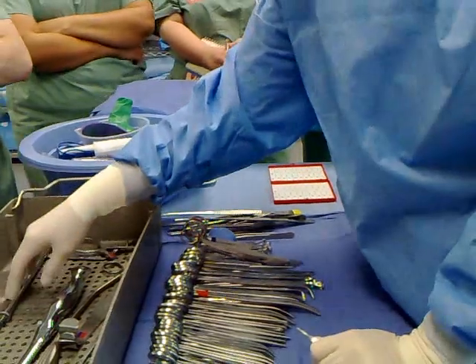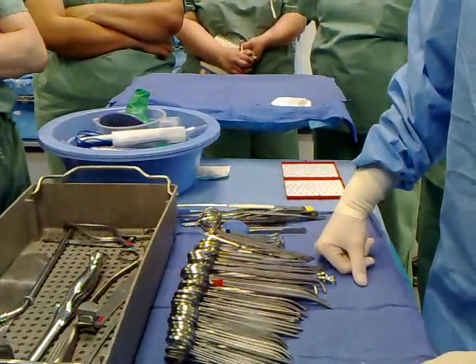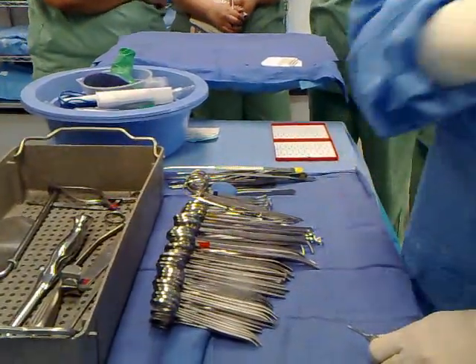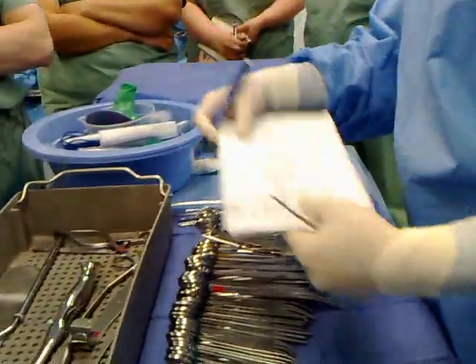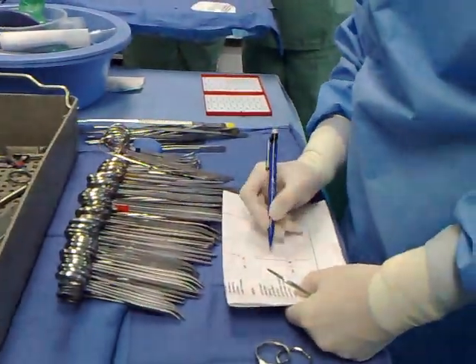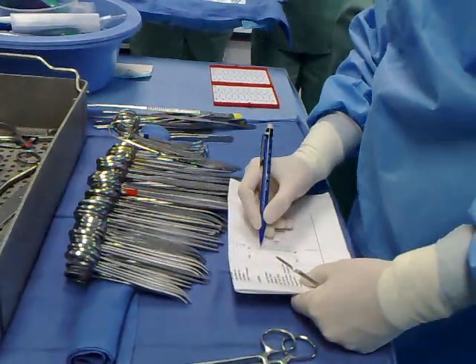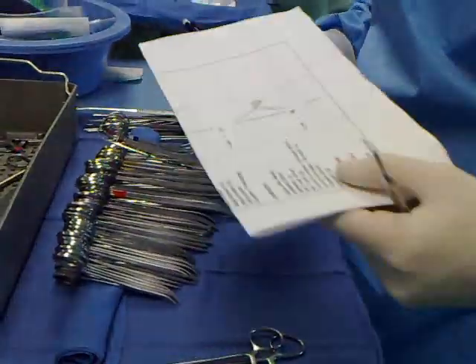Retractors — they should be eighteen. Counting: two, four, six, eight, ten, twelve, fourteen, sixteen — then the remaining ones. When you group them, count as a whole. Ten. You take a line here and draw it all the way in — total of ten.